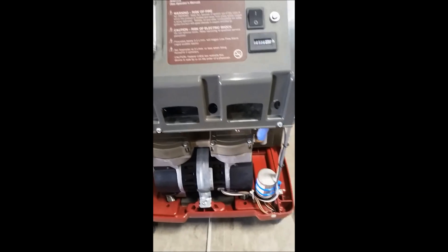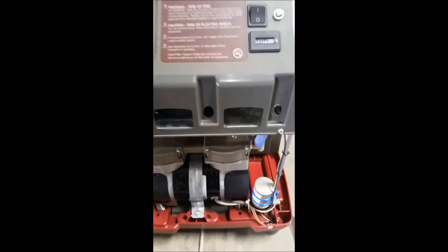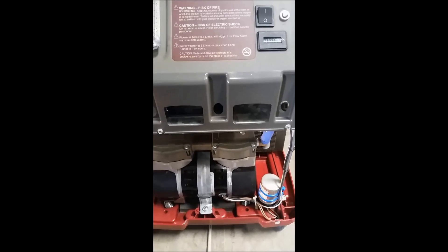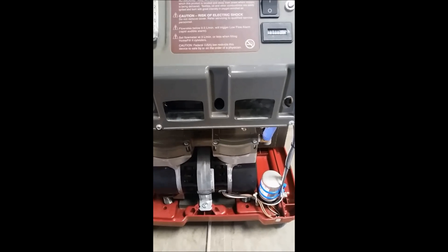Today we're going to be looking at rebuilding an Invacare concentrator compressor. You need to rebuild the compressor whenever the machine is operational but is making a large amount of noise. You will frequently hear patients complain about this, and it's due to something inside the housing rattling around. A simple fix solves this issue.